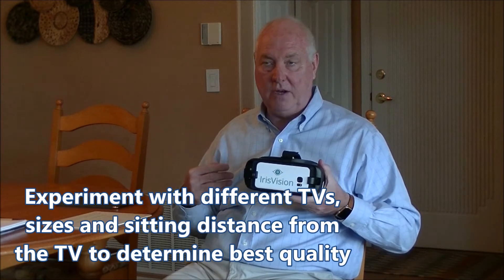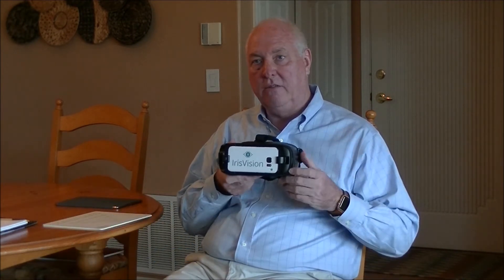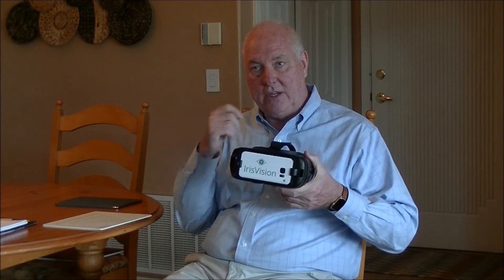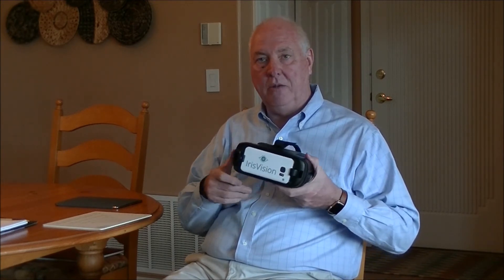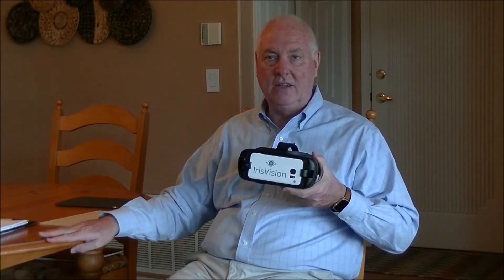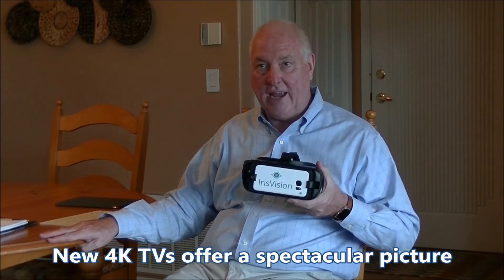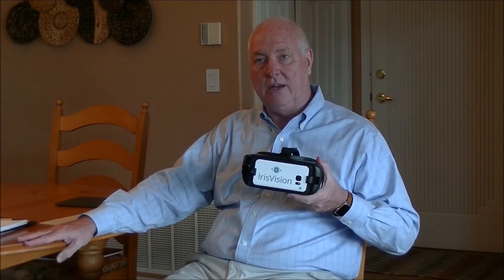You might want to think of it as a little experiment to try different distances. For instance, at 10 feet away with a very large television, I was able to read everything on the screen, but it looked a little fuzzy. When I moved into the den where I have a 32-inch TV and was sitting about 6 feet away, the picture was spectacular. I went to a local retailer and experimented with new TVs that have 4K — the picture was spectacular, and some of these TVs really are not that expensive nowadays. Remember, this is a camera looking at a screen.